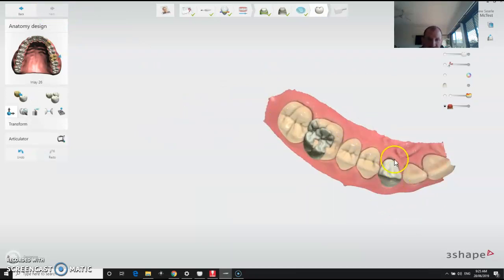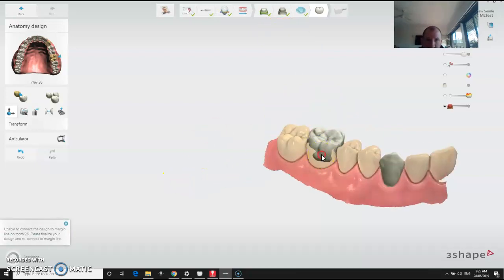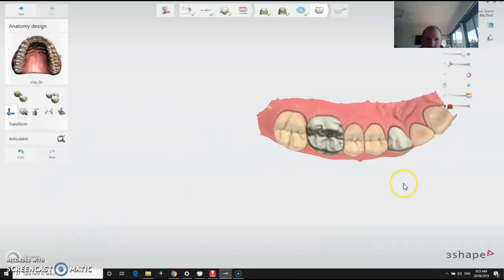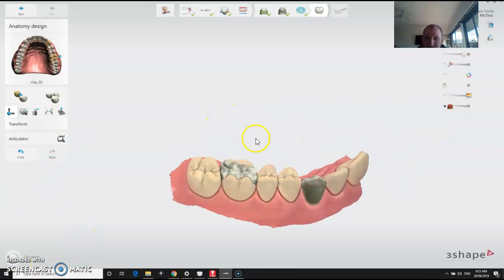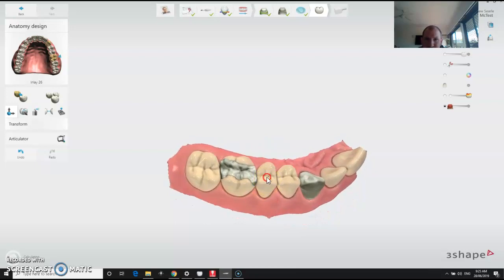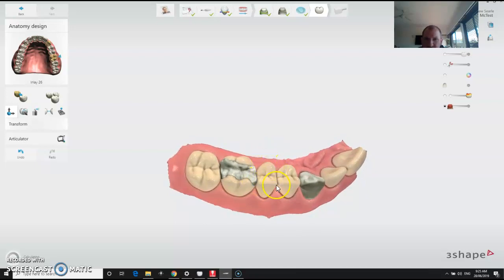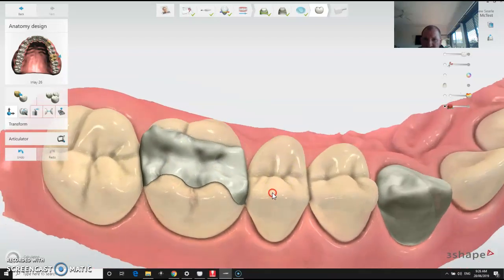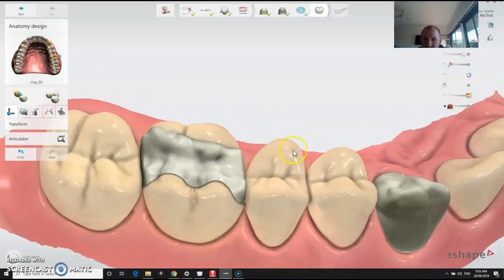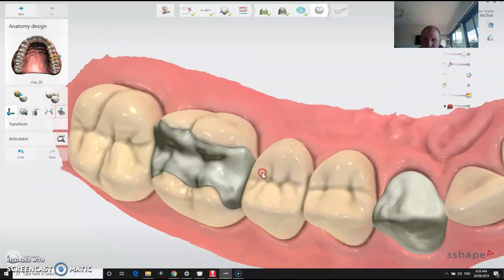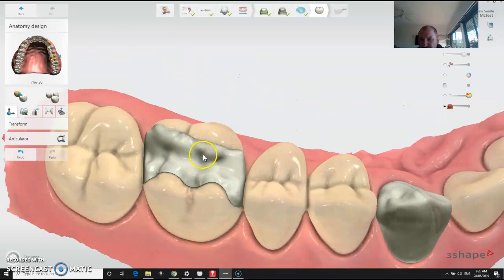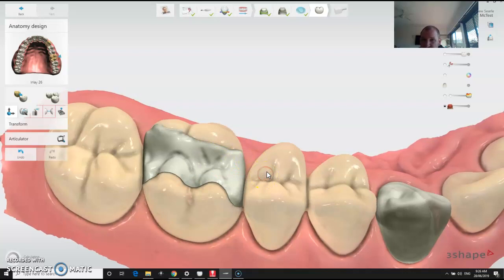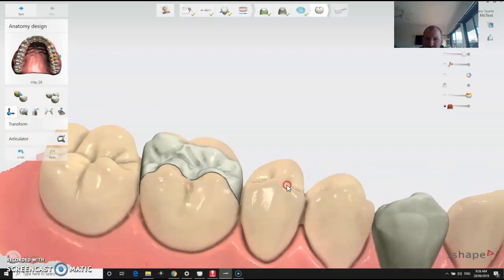It's going to auto-generate teeth — it will try and produce as close as it possibly can to what you've got there. Once it's finished calculating, you can make any adjustments you want. I've semi-designed this one already, so it's basically reproducing what I've already created. It's going to get it into position within 70 to 80 percent, and then you might need to thin it out and create a little bit of anatomy in there — which you can do quite easily yourself.